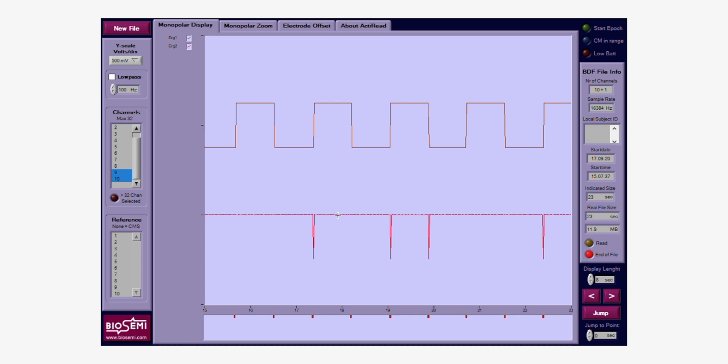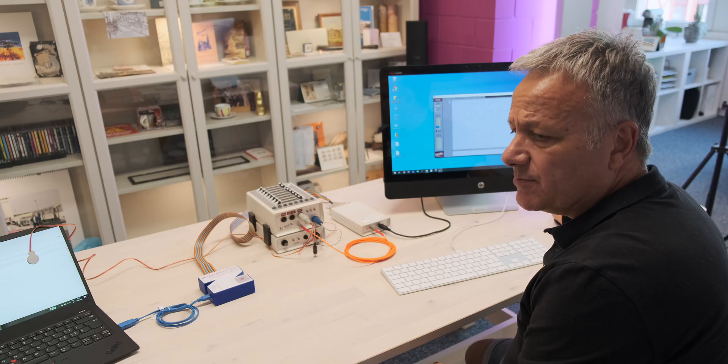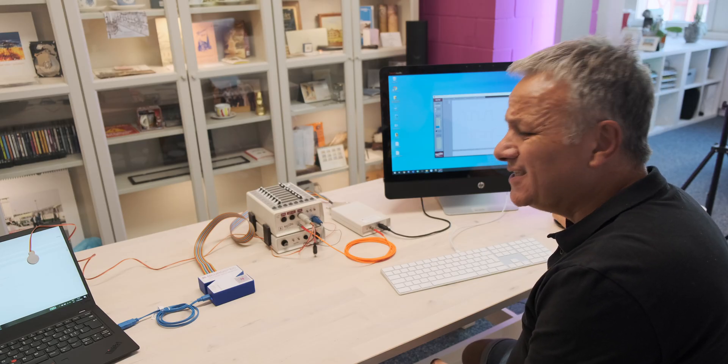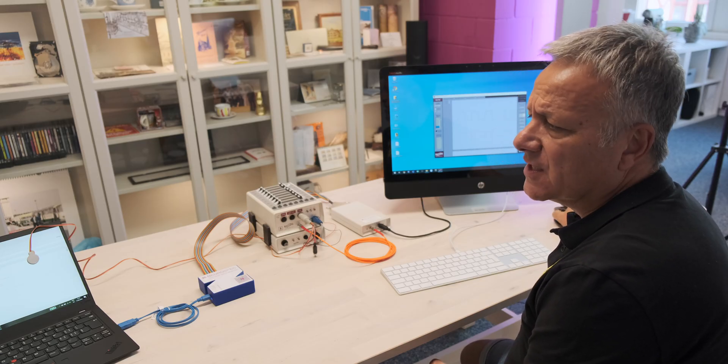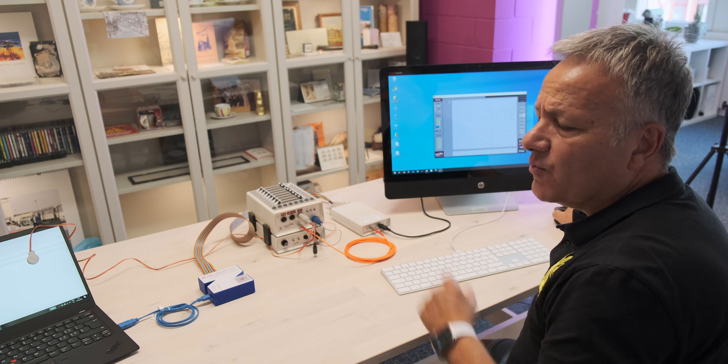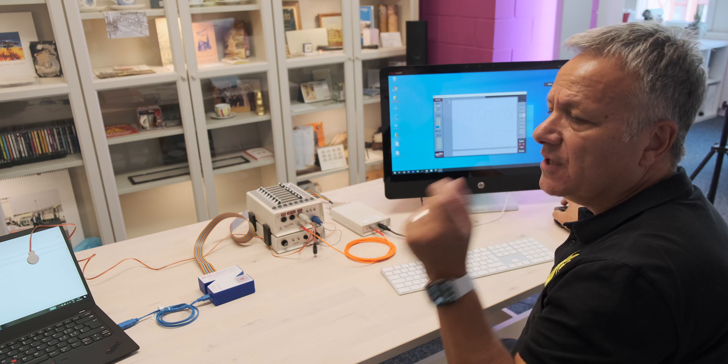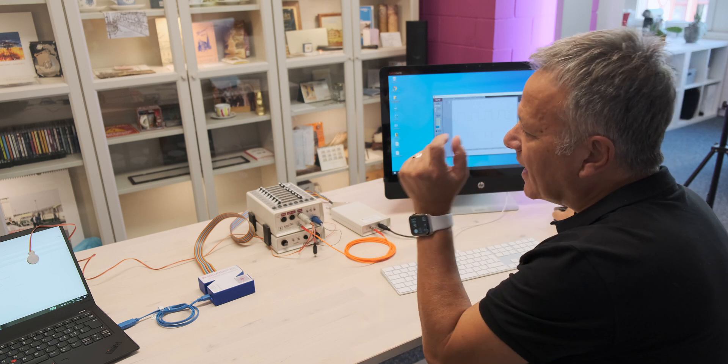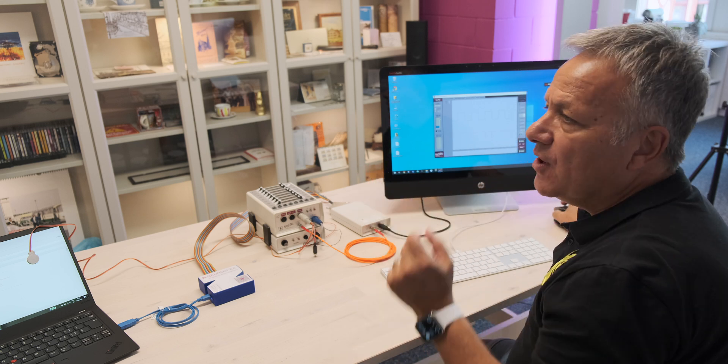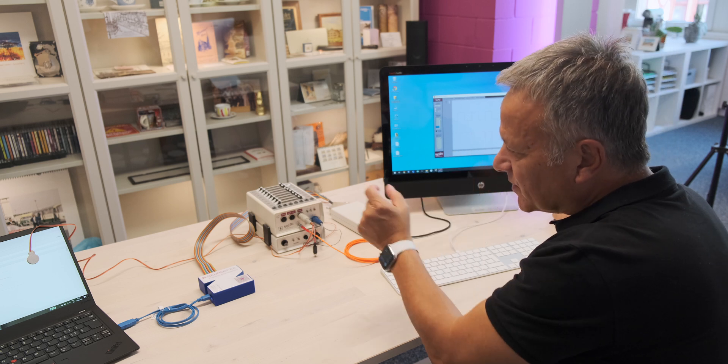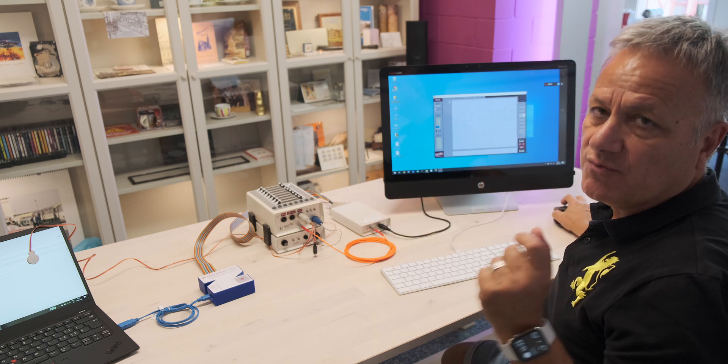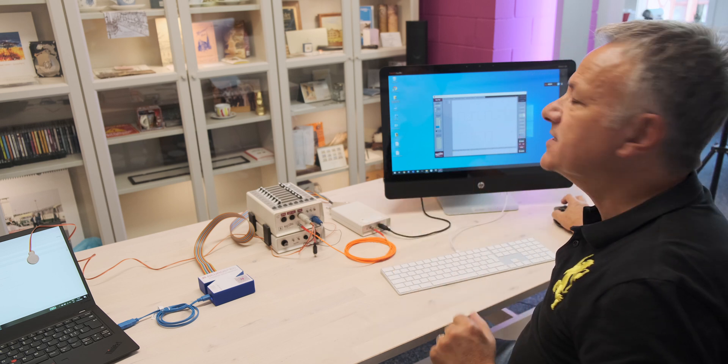And now we can see the ERG response of the photocell. We can see the incoming trigger that has been split and presented into the ERG input on channel 2. And we can also see the little trigger marks down the bottom here. Now these trigger marks are 8 milliseconds. So we need to really zoom in hard to see what the actual delay is that the Active 2 or this particular EEG could have recorded. But let's see.